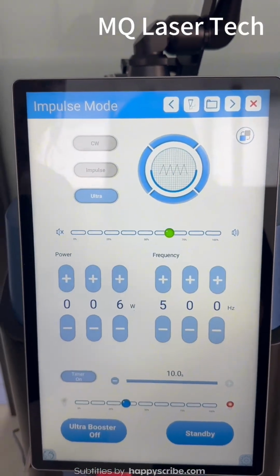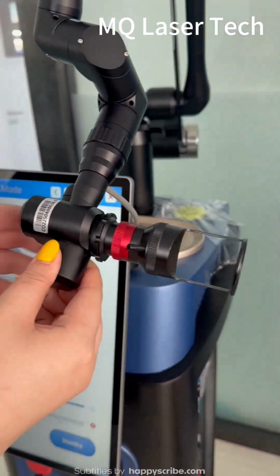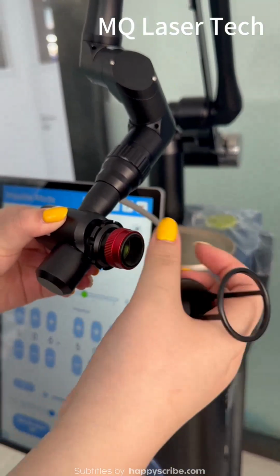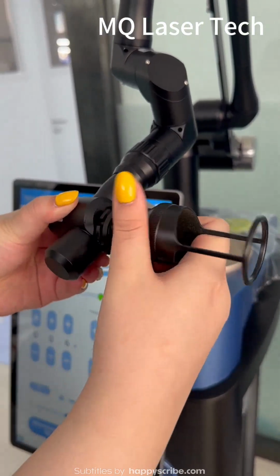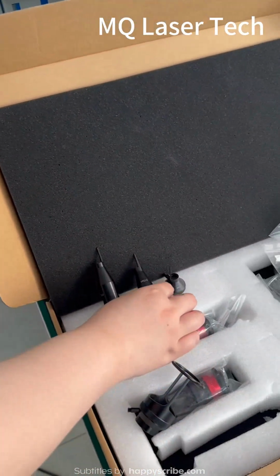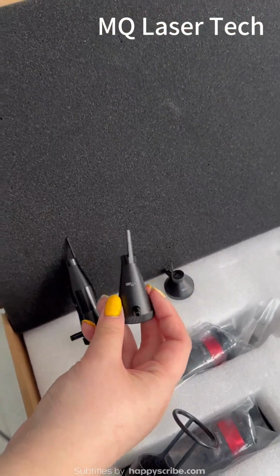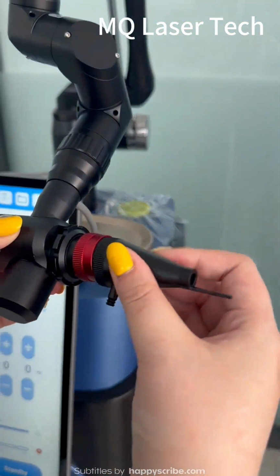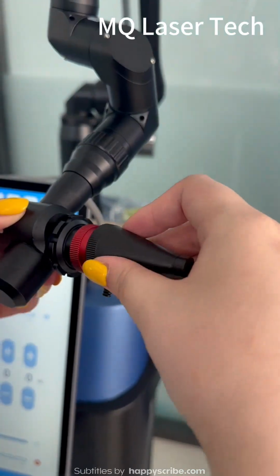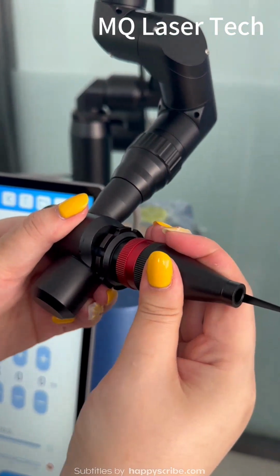The next mode is cutting mode. Before you start the treatment, you need to replace the treatment head. These are the three different cutting heads. You can install it like this.